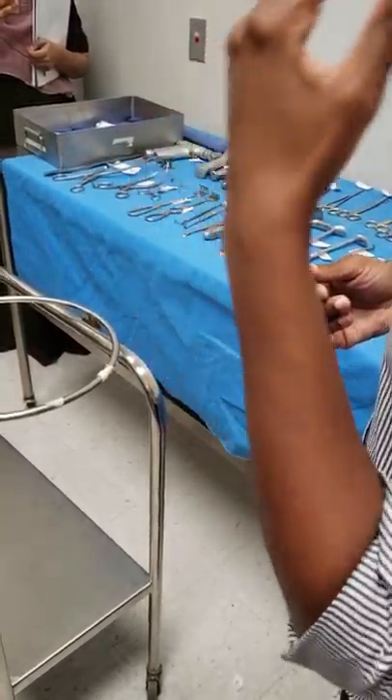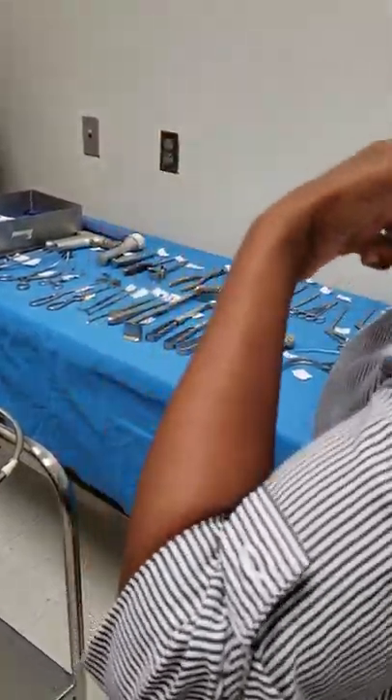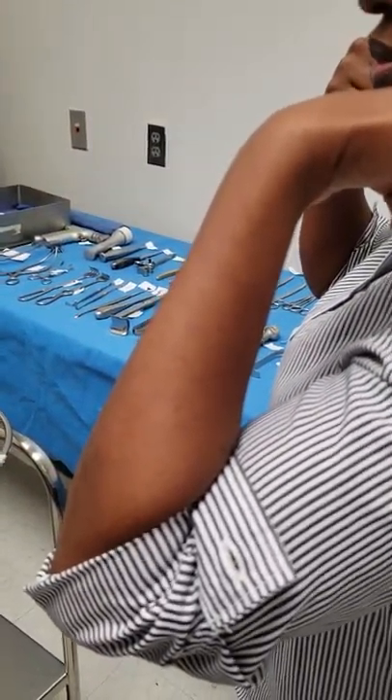When I come back in this room and I know I'm about to open, I am going to have on all my PPE attire. That means my mask is on my face.